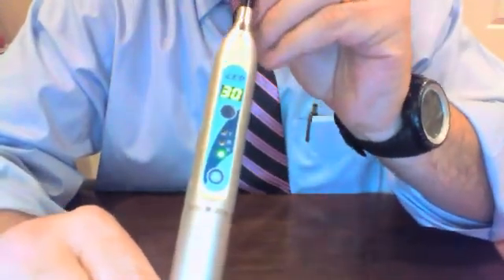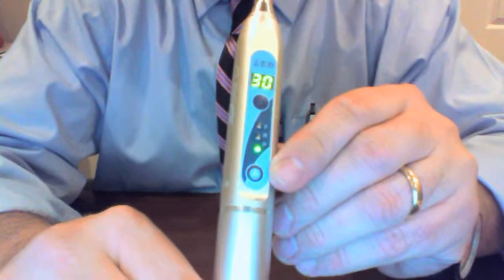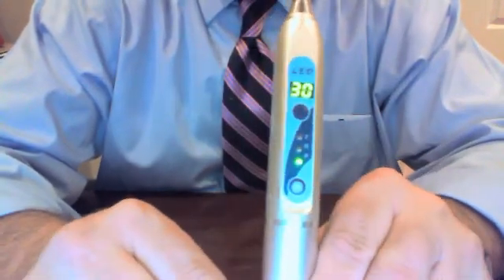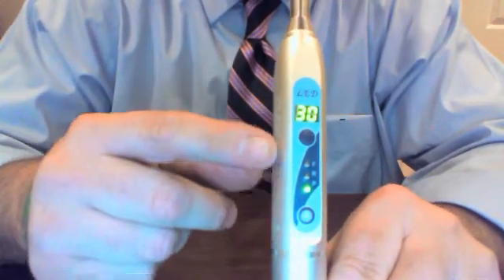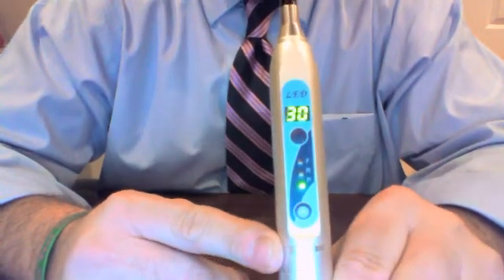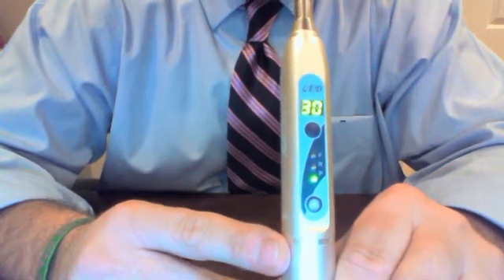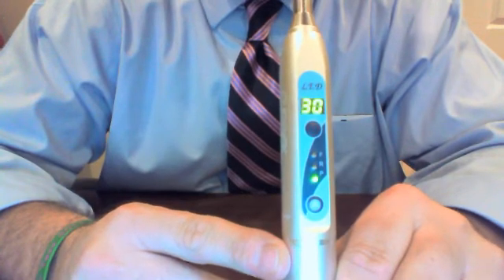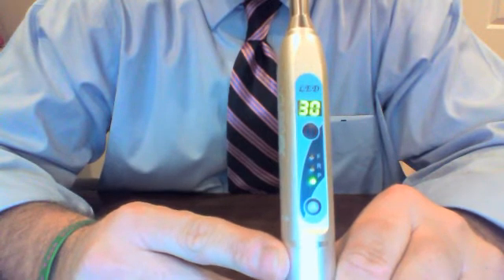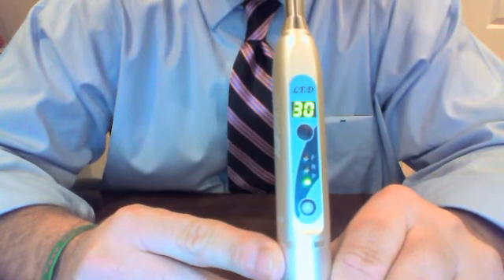There are alarms for starting and stopping. It has a digital display. Another unique feature is — at first glance you think this is a pretty cool light with a digital readout and three different modes. However, when we worked with the manufacturer designing this light, we designed it to actually have six different modes. There are two different programs: Program 1, which allows the CureFX light to operate at half power, up to 1,000 milliwatts, and then Program 2, which allows you to utilize the maximum power.